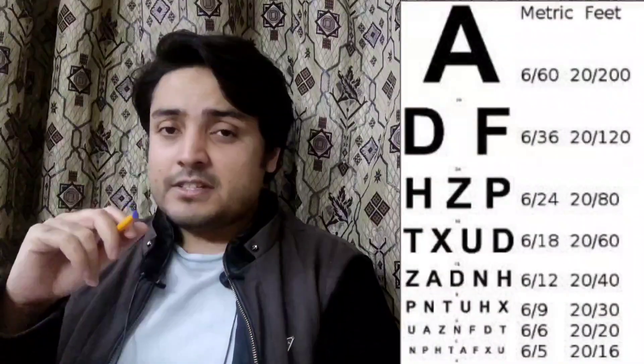The optometrist will cover one eye first and you will read the letters, then they will cover the other eye and repeat. When you look at the chart, there are numbers written at the sides. Let's discuss what those mean.